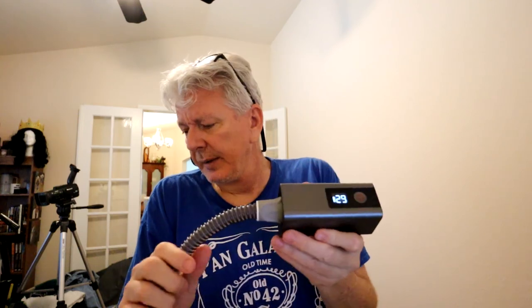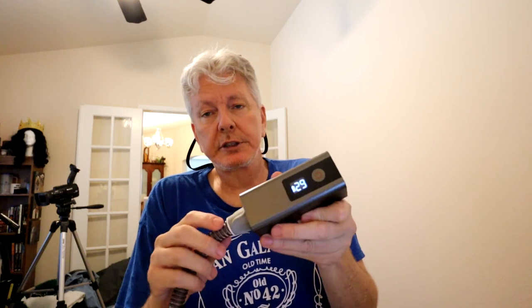This thing seems pretty solid. I really like it. I have that other white one that's similar to this, but this is a little more streamlined and it's got the digital readout on it, which is really cool. So we'll just wait to see how that goes — it'll do its runtime and then I'll have a clean CPAP machine. We'll check in after it's done.